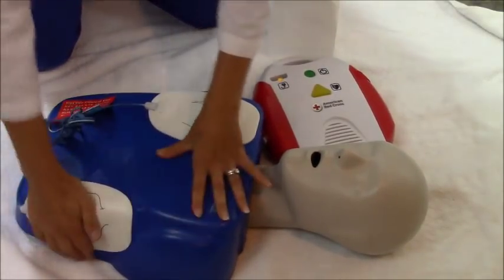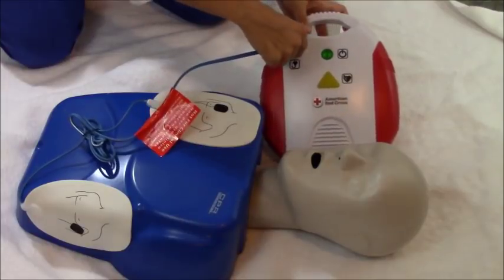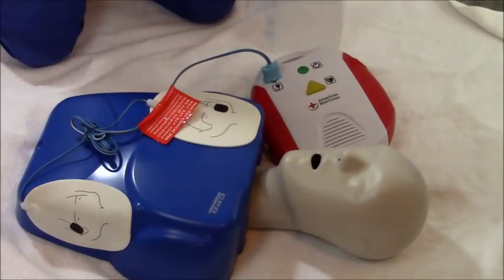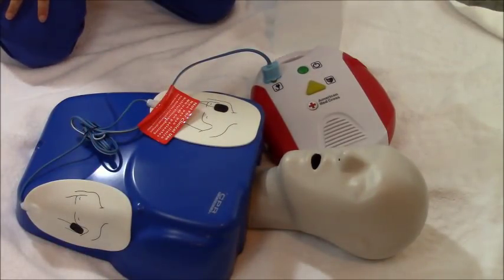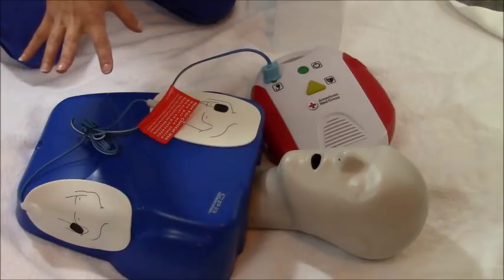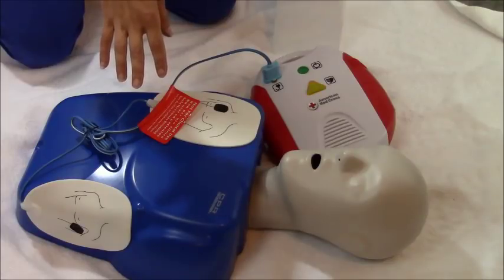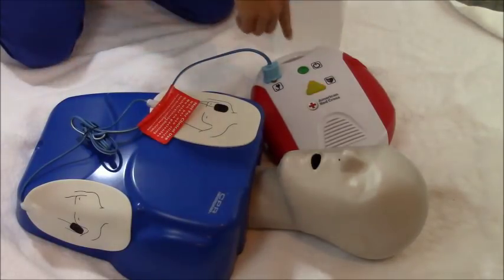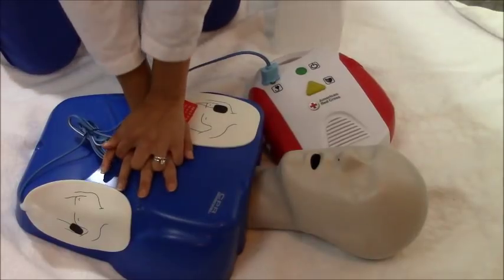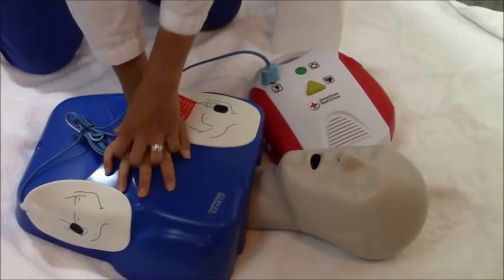Place one pad underneath the armpit, right below the nipple line, and press firmly. Connect the other pad with the flashing button indicator. The AED will say 'analyzing rhythm — everyone stand clear,' so shout 'clear.' It will then indicate 'shock advised and charging' — shout 'shock!' Everyone stands clear, push the shock button, and shout 'clear' again before delivering the shock. After shock delivery, get back on the chest and begin five cycles of CPR, which equals about two minutes, then the AED will reanalyze and shock again if needed.